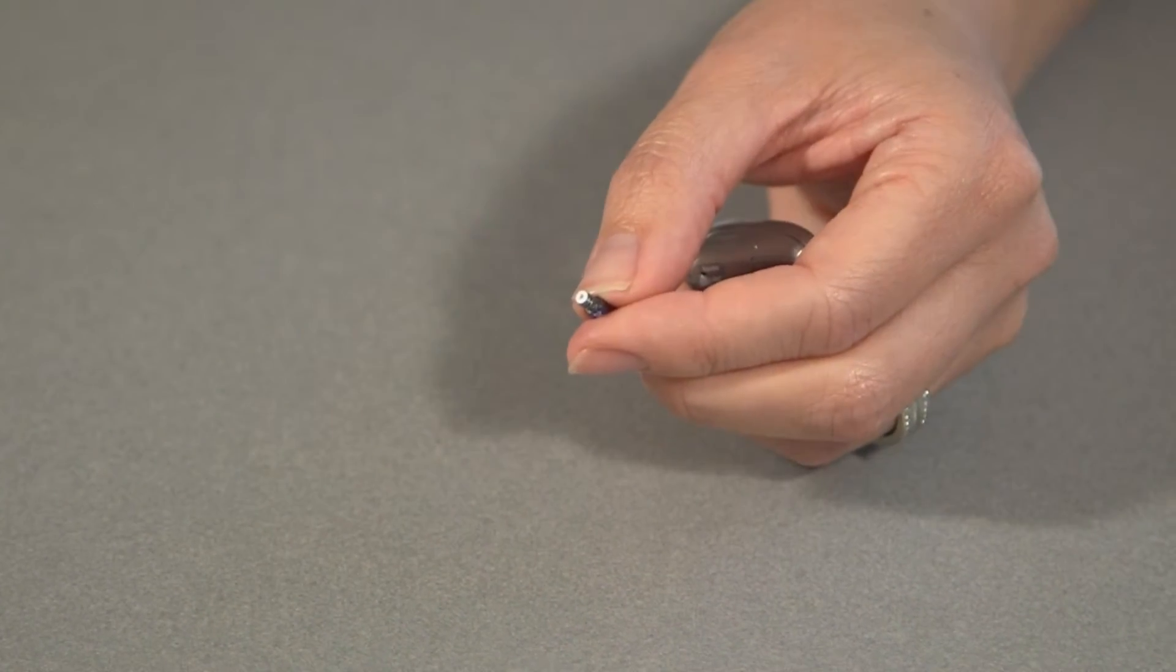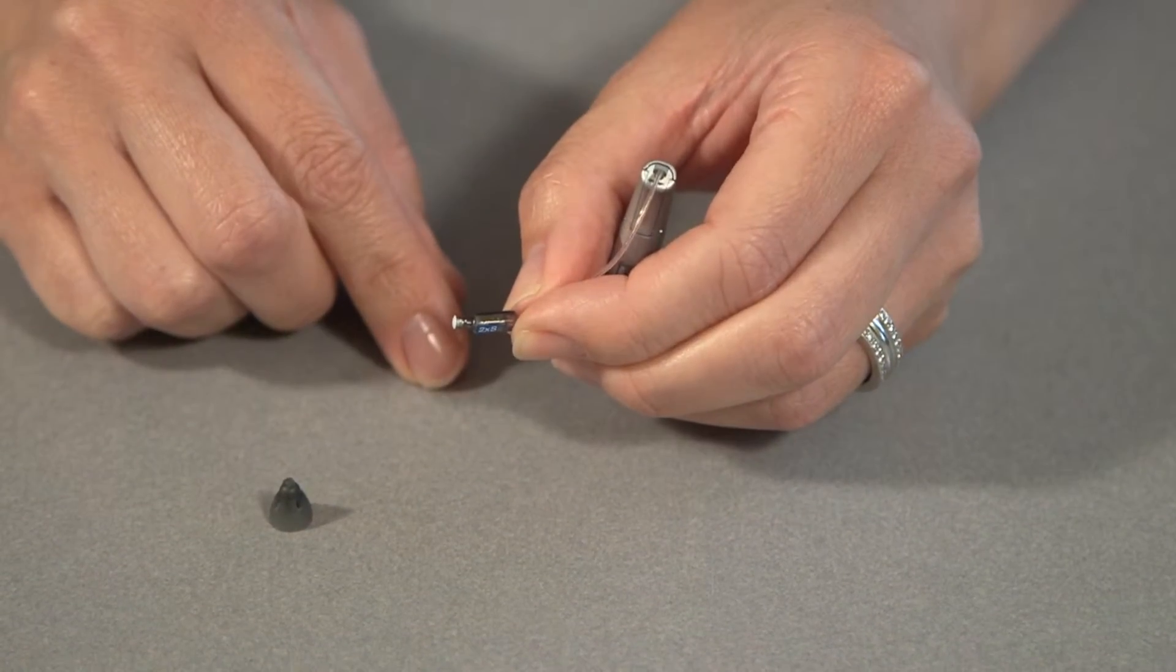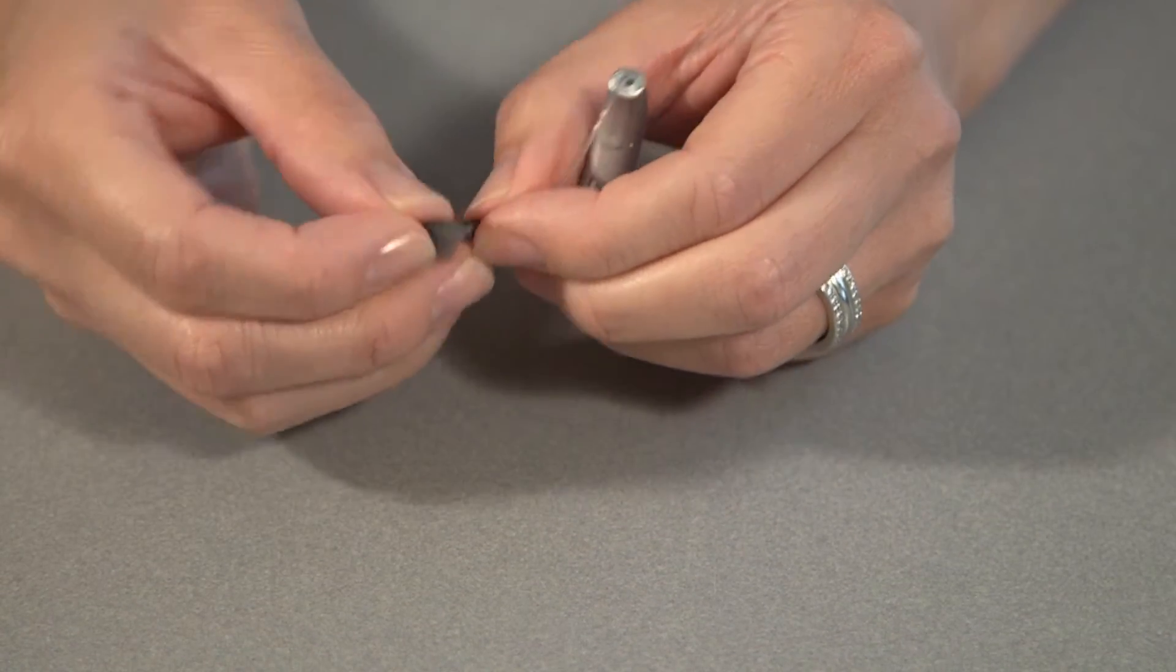And then you get a new dome. And the new dome just slides on to the receiver like this.